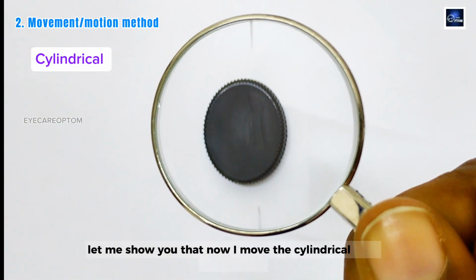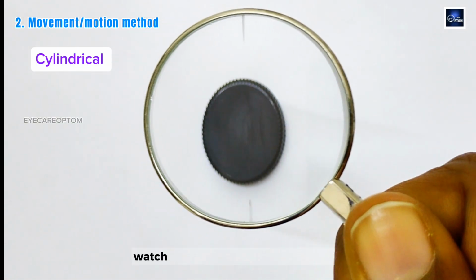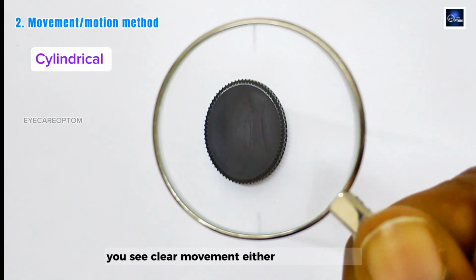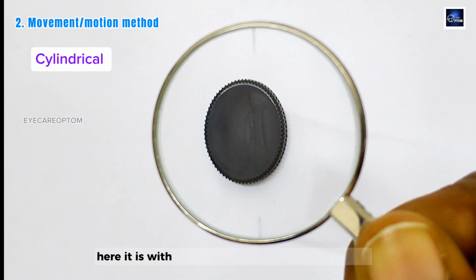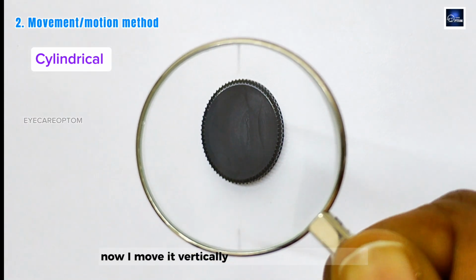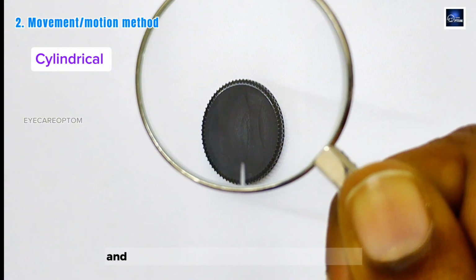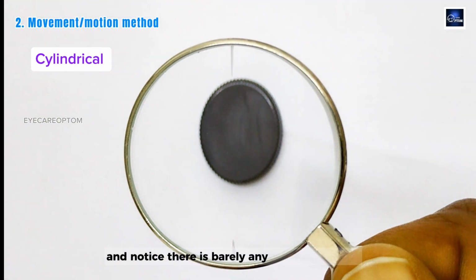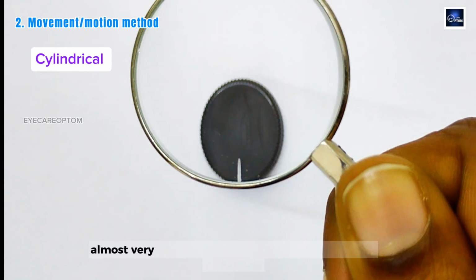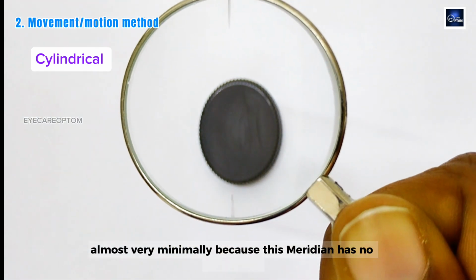Now I move the cylindrical lens horizontally. Watch the image. Along this meridian, you see clear movement either against or with. Here it is with because it's a minus cylindrical lens. Now I move it vertically along the other meridian and notice there is barely any movement at all. The image is staying almost still or moves very minimally because this meridian has no real power.